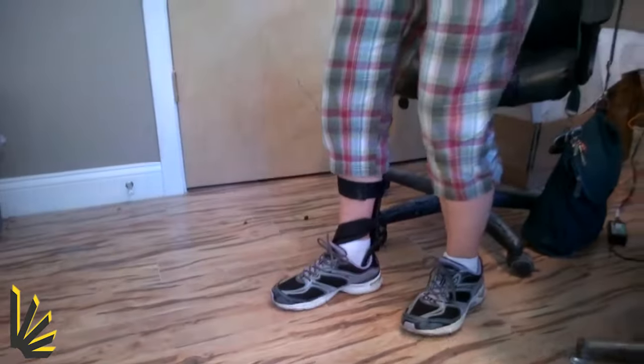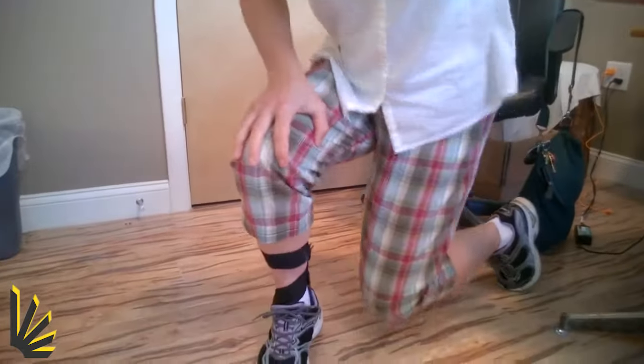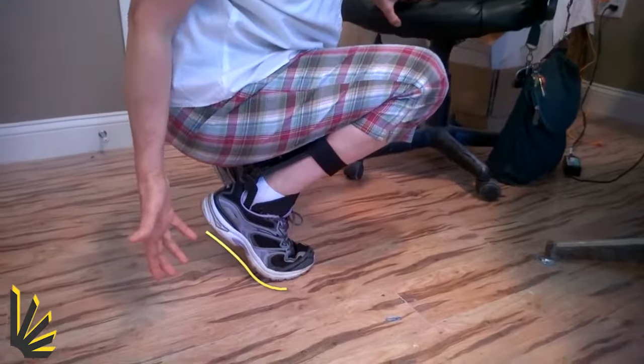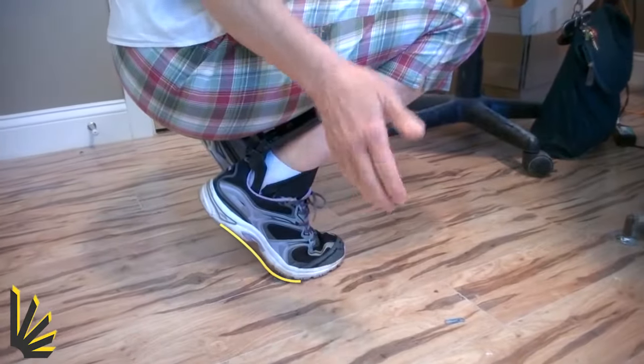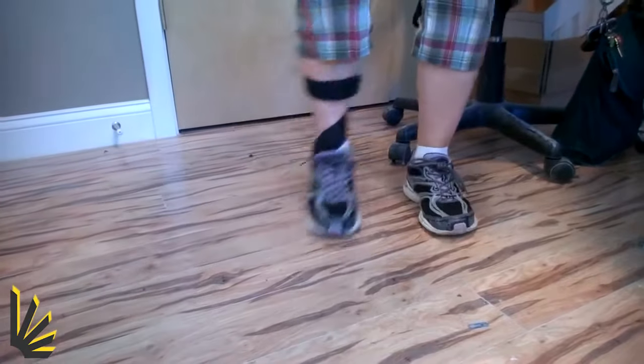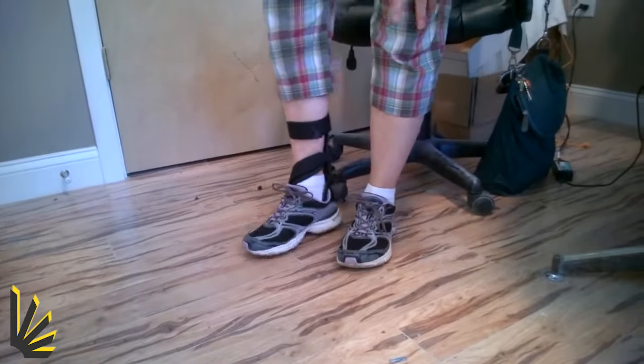So what I can do with it is this. It does not have a full foot plate, so it bends at the toe, which is great for gardening and climbing and walking. That's a huge part of what I like about it.